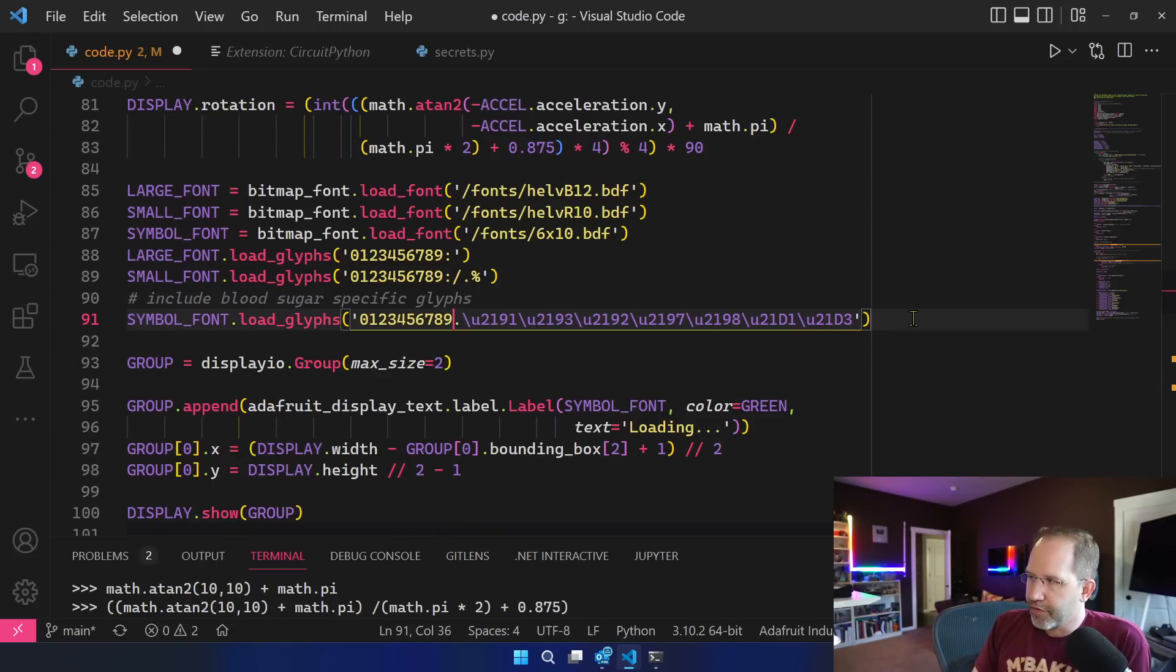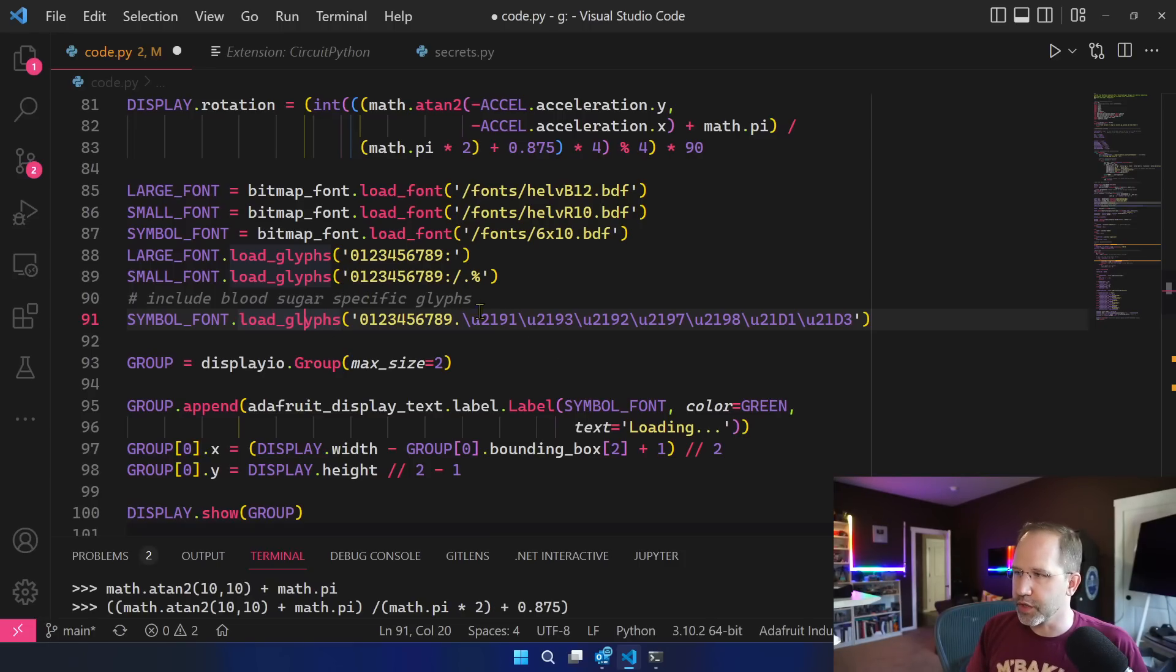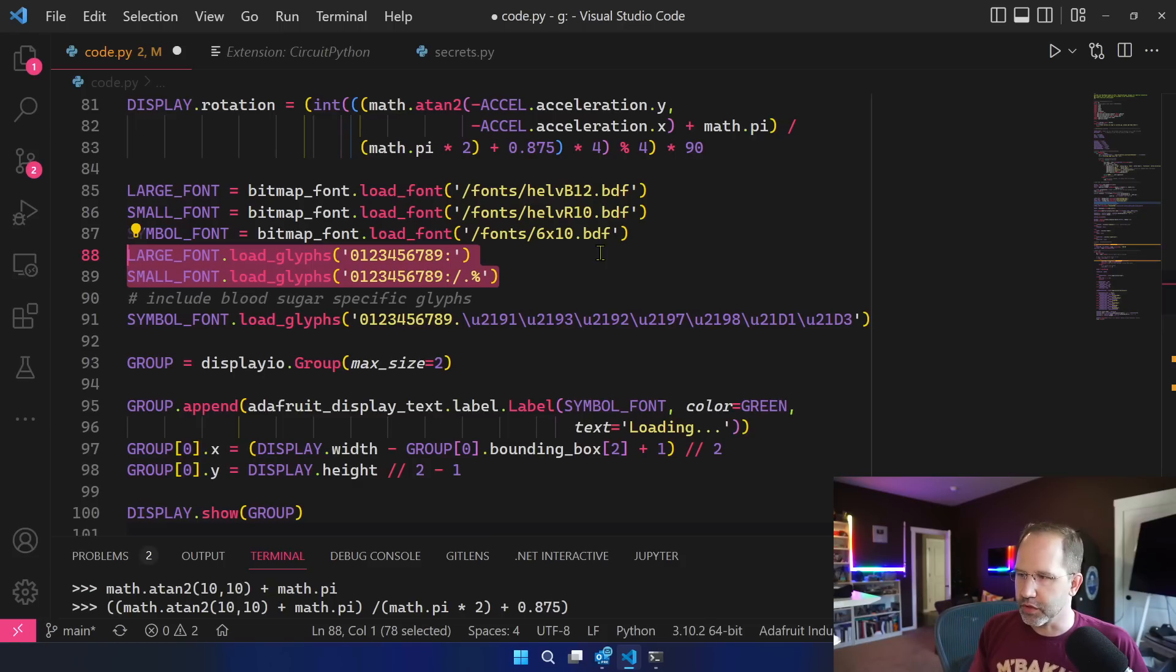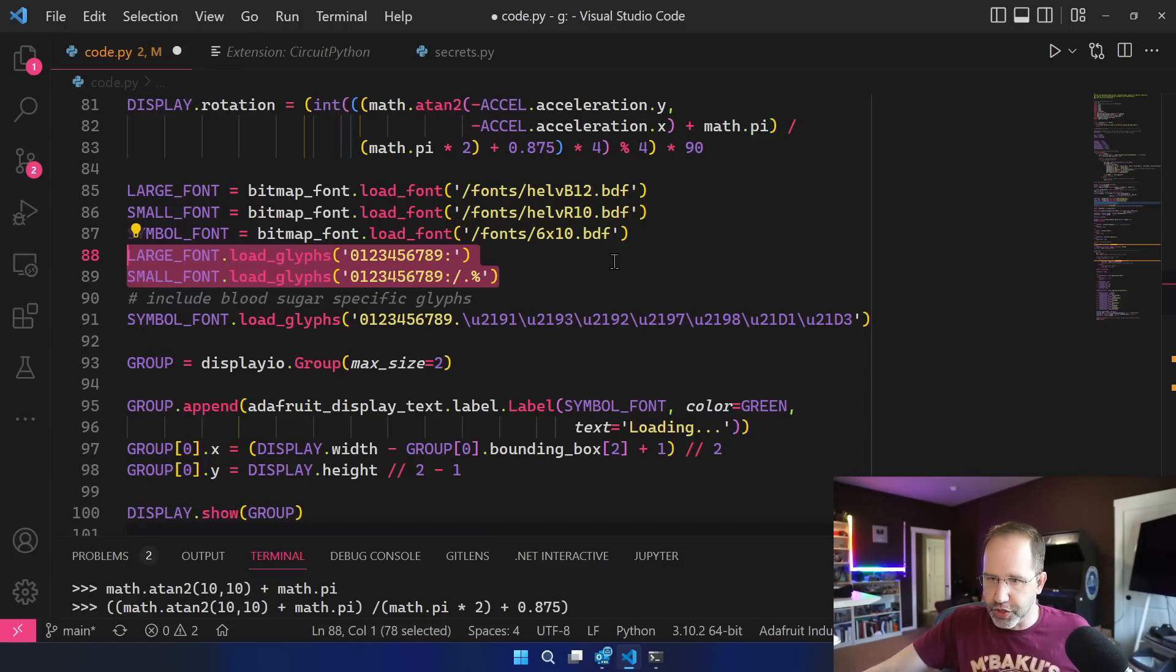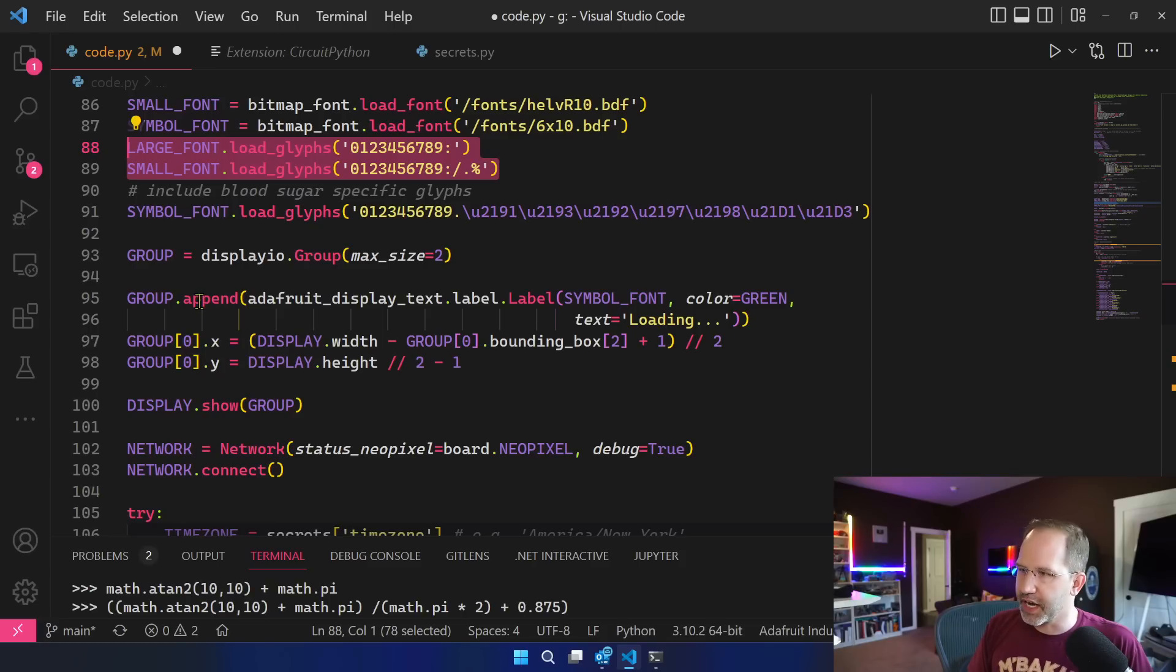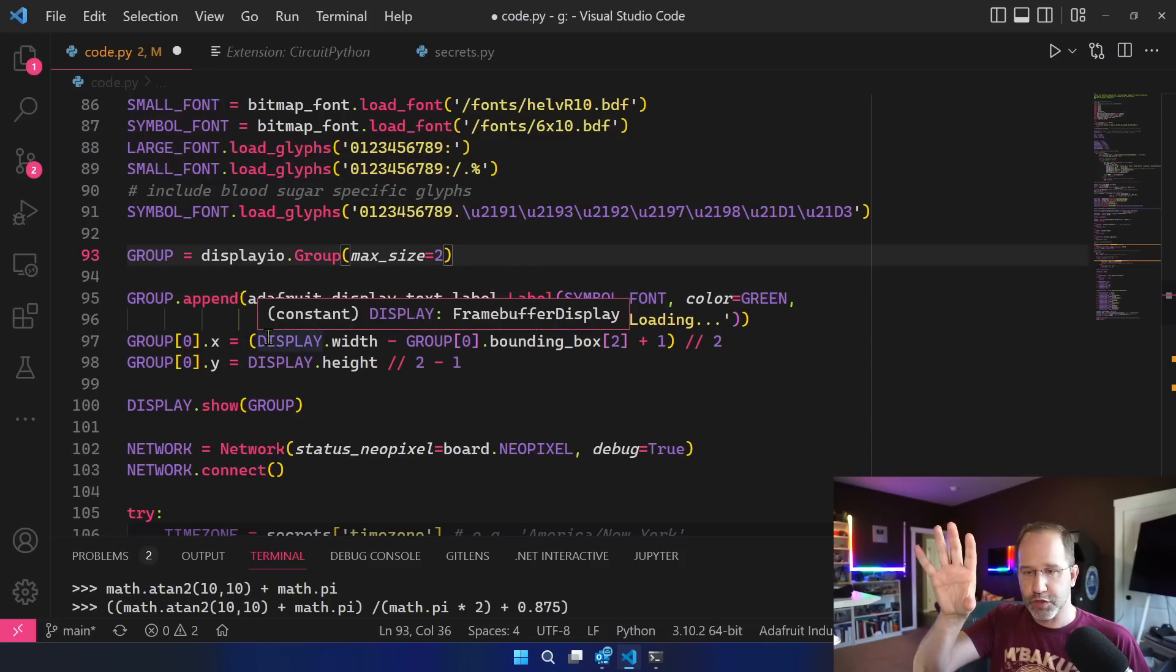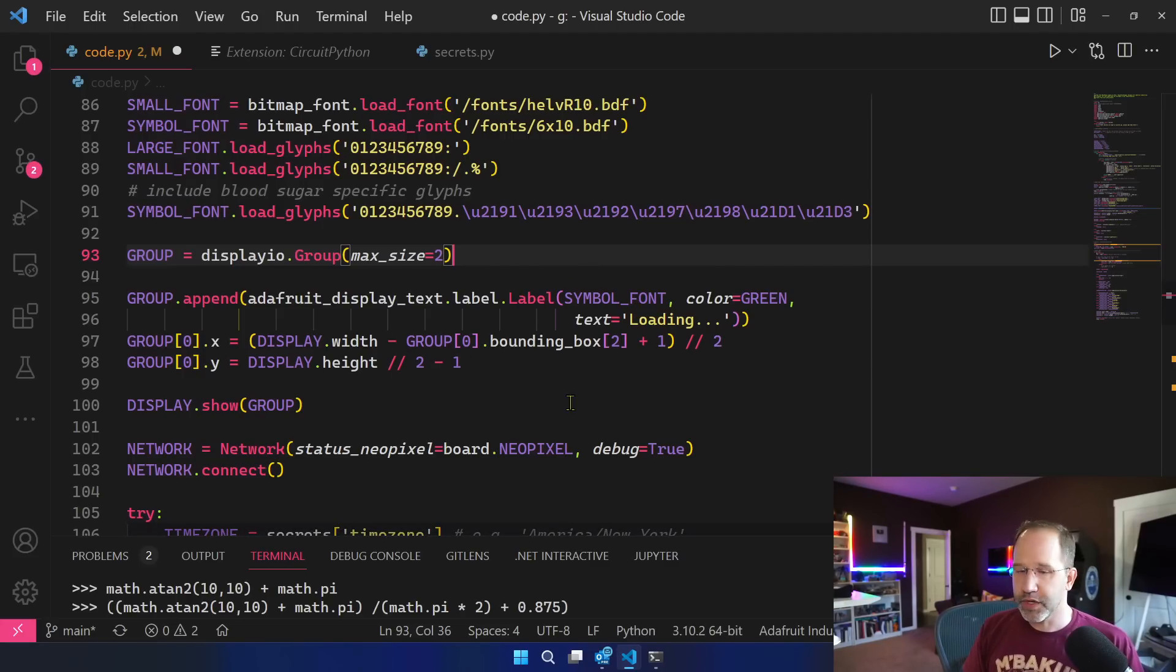So how far do you need to know? Well you know that there's an abstraction called load glyphs and you know that it's pulling bitmaps out but knowing that there's a memory constraint issue here is important. I'm actually not currently using large font and small font. I'm still poking around trying to figure out what's next. I think I want to draw a chart or a graph behind it with a trend line for my blood sugar which I think would be really cool. And then here we go and add our labels. We take that symbol font. Now here's a part that I'm confused about. I actually don't know how I'm going to solve this because in Adafruit you make a label, you put it into a group that's going to be displayed on the screen and then you give it the color ahead of time, or a priori if you want to sound fancy.